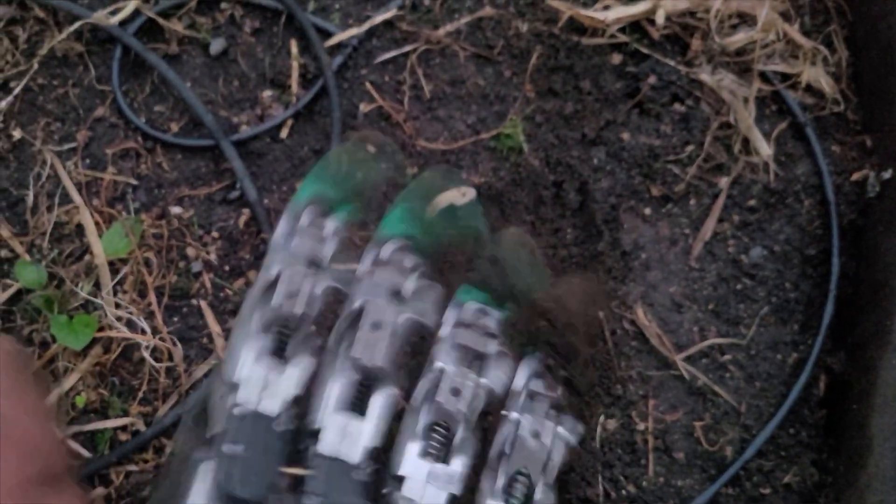As you can see, today I have swapped out the distals for a set of cat claws. Initially I didn't think they'd have any actual application, but I have to say for light digging in soft dirt in the garden, they work surprisingly well.